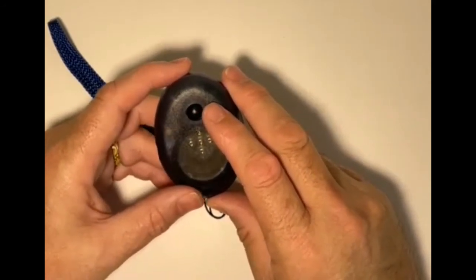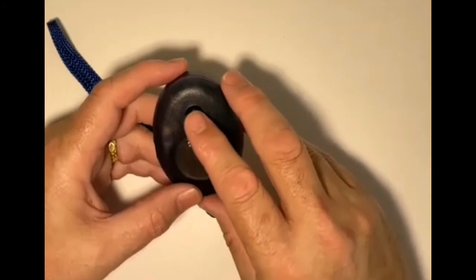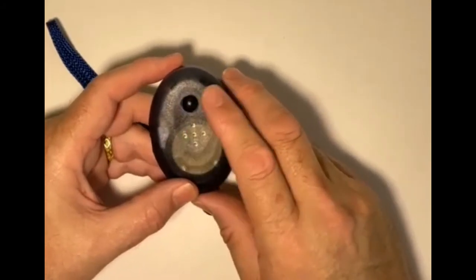The other tip I want to tell you about is if I just press the top button and release it, it's not going to say anything. What it's really designed to do is to hold down with your thumb.